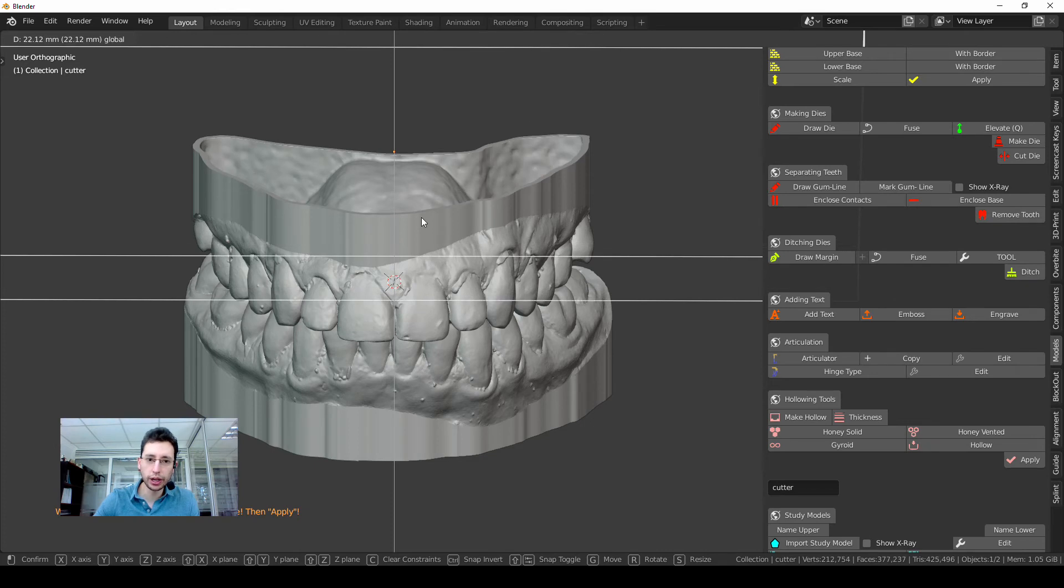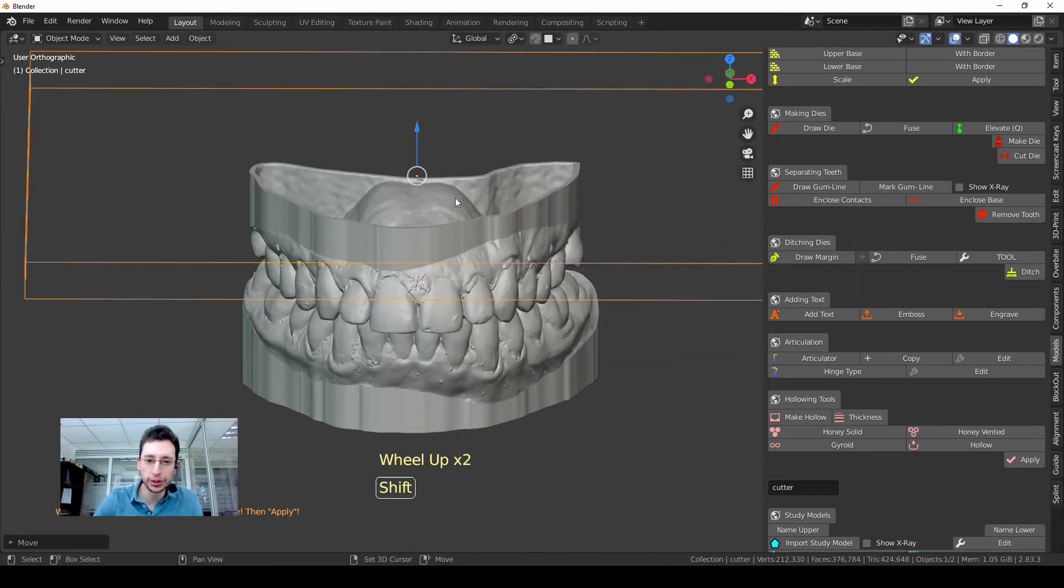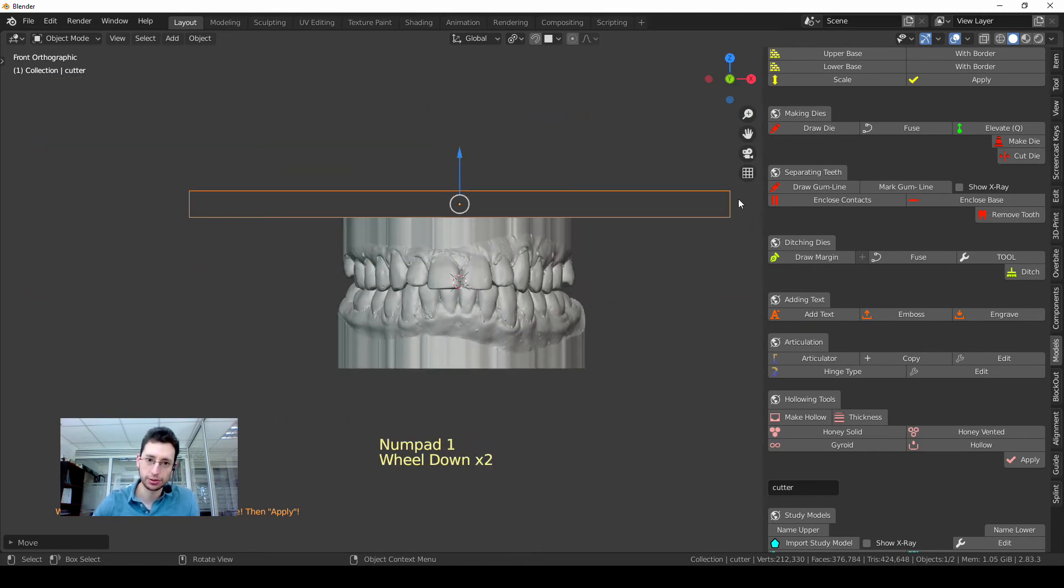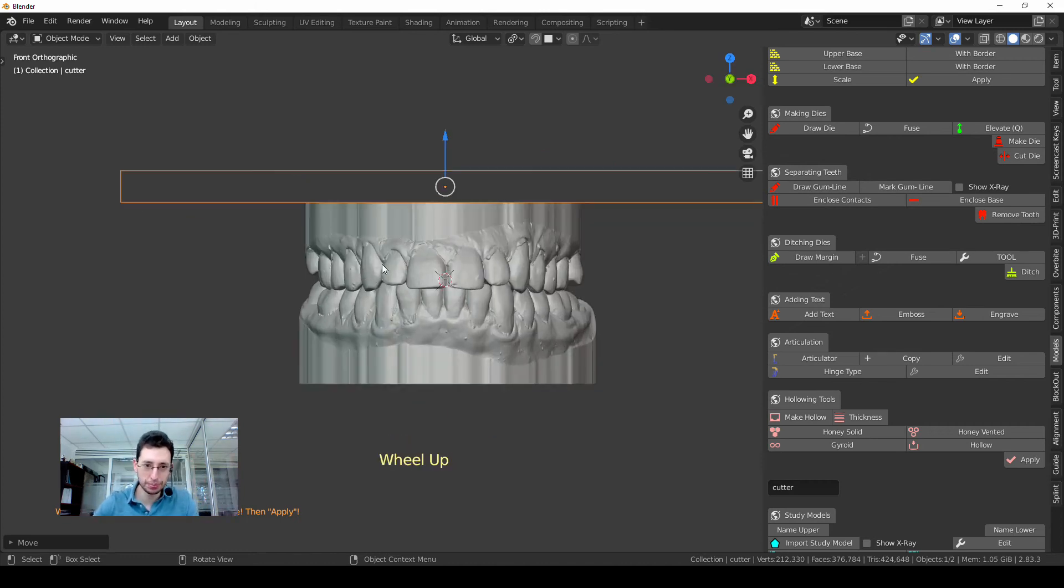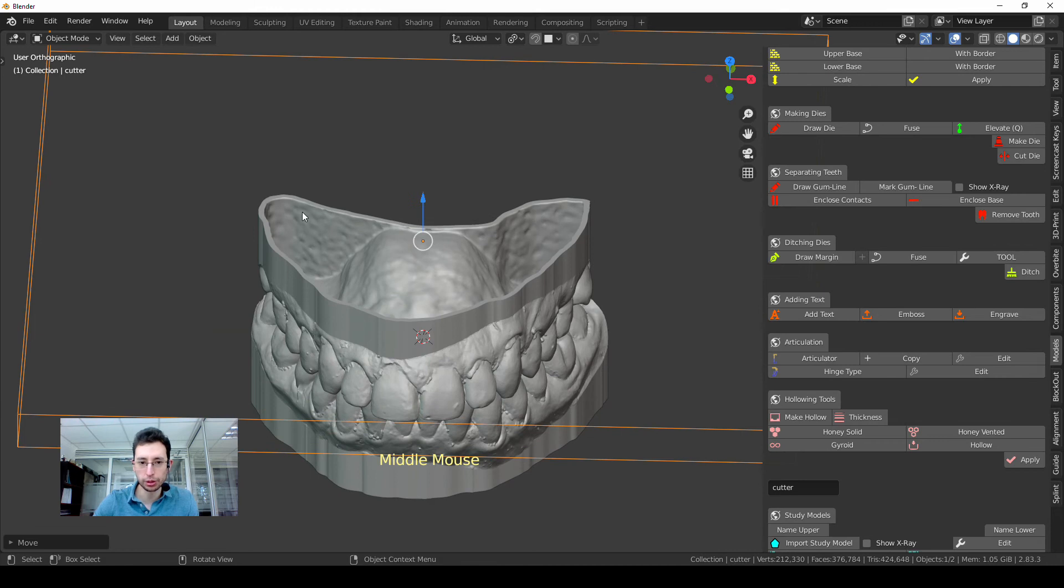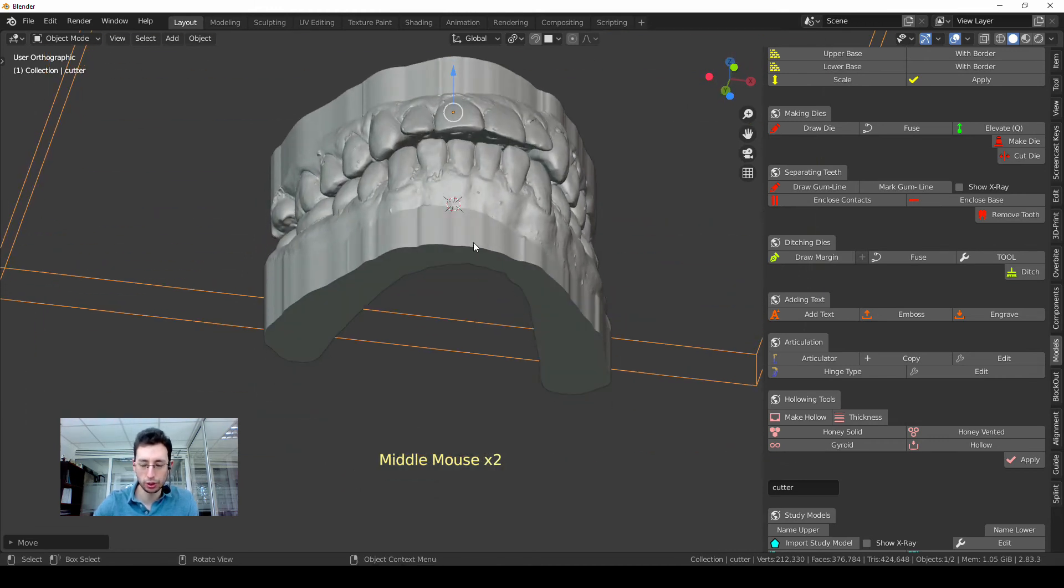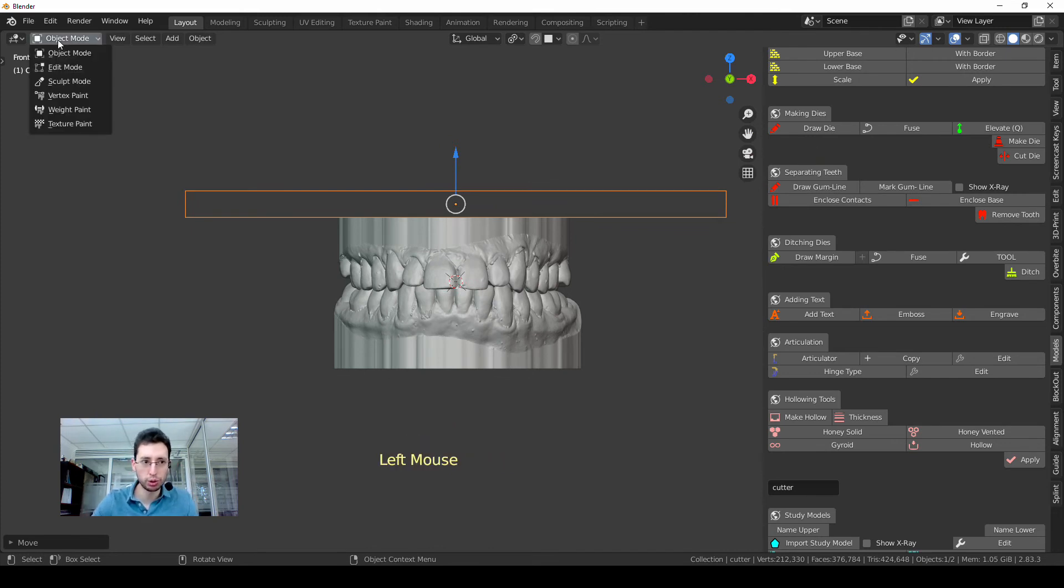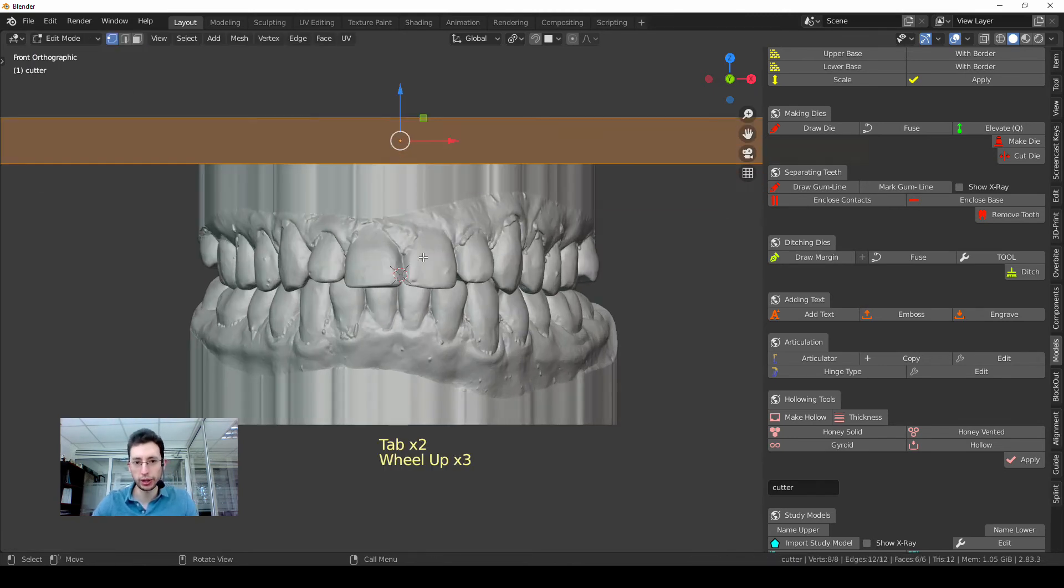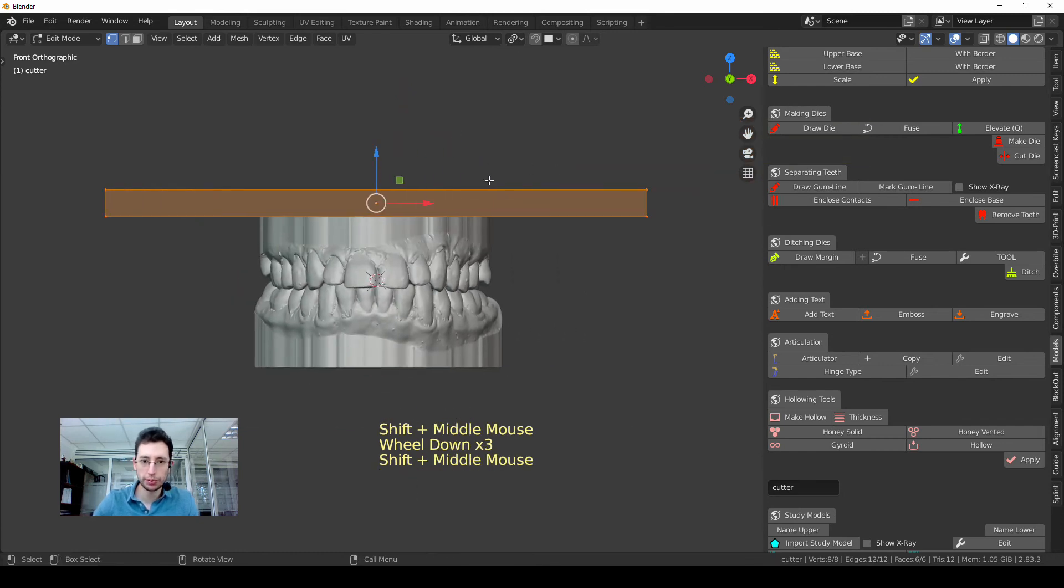Okay, so what I'm doing—sorry, I did it and didn't explain it—I'm moving with this arrow, this small cube or rectangle, whatever, this cube that will make everything disappear. So this is a cutting tool and what I'm removing is the top part of the model. But I have to do the same thing for the lower model. In order to do that, I'm going to the Edit mode. You can do it like here or you can press the Tab button, and with Tab you go from Object mode to Edit mode.